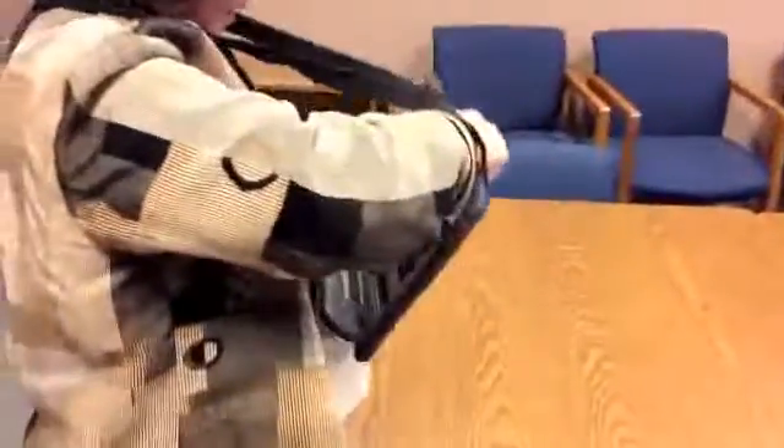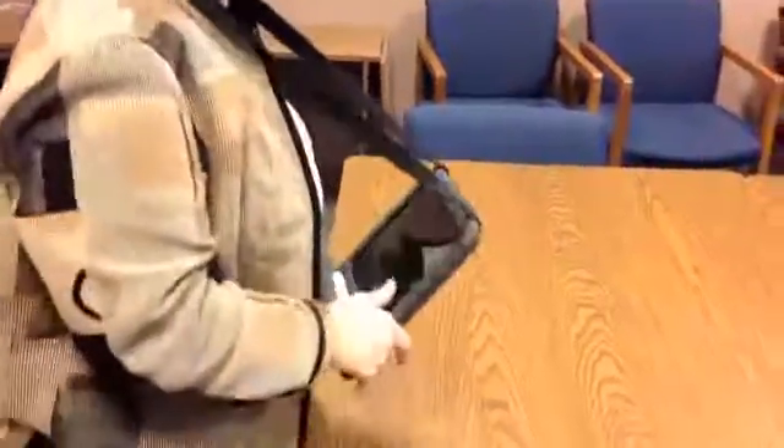I made this little clip here which is spring-loaded, so this little clip is going to act as a shelf. I put my shirt over the top and put my jacket on. So let's say I only have the use of one hand — I can pick this up, put it over the top of my head, rest it right here, and then go ahead and type. And that's how you quickly turn an iPad into a wearable iPad.